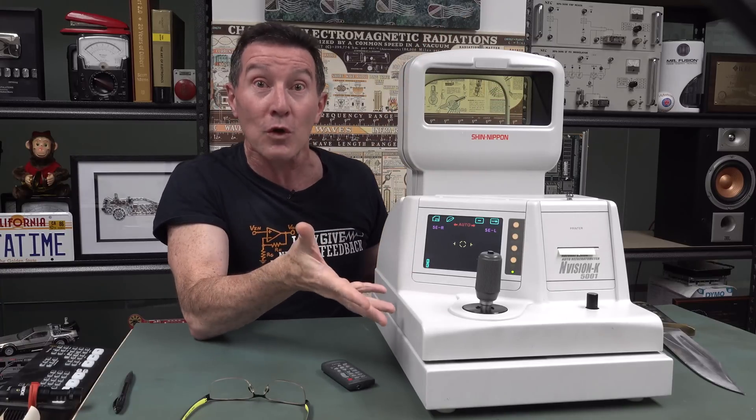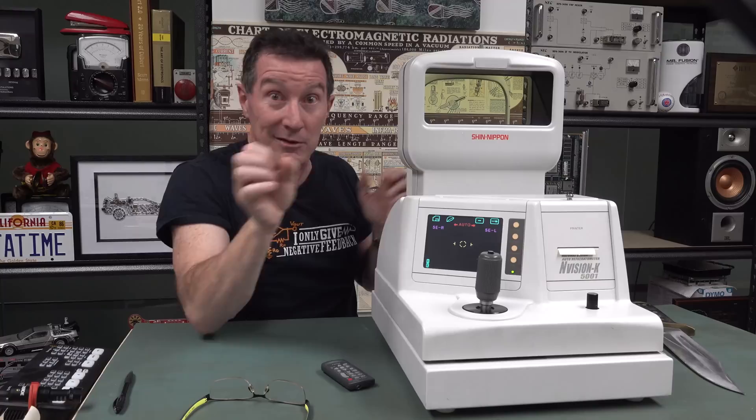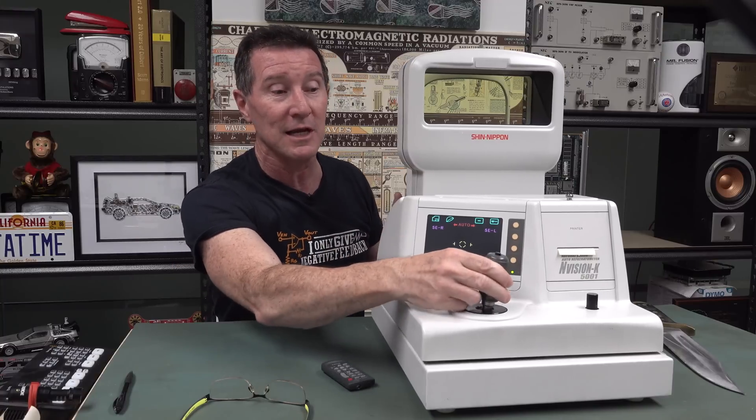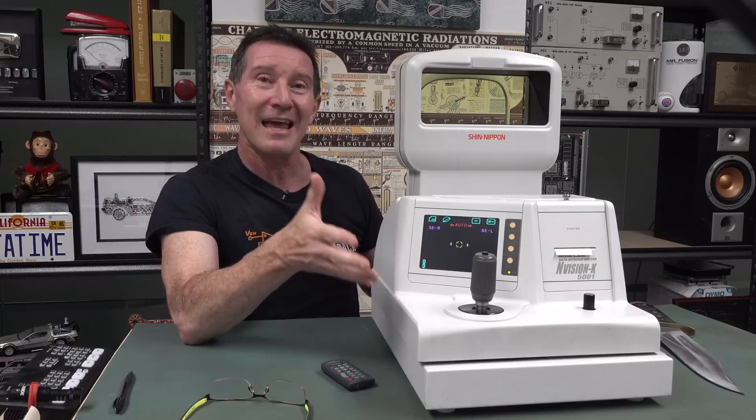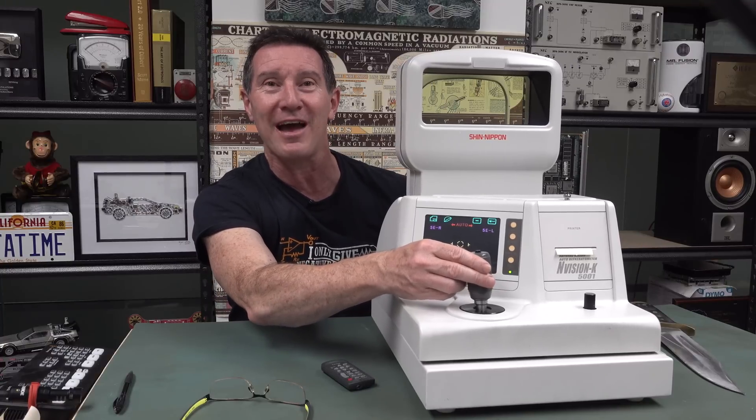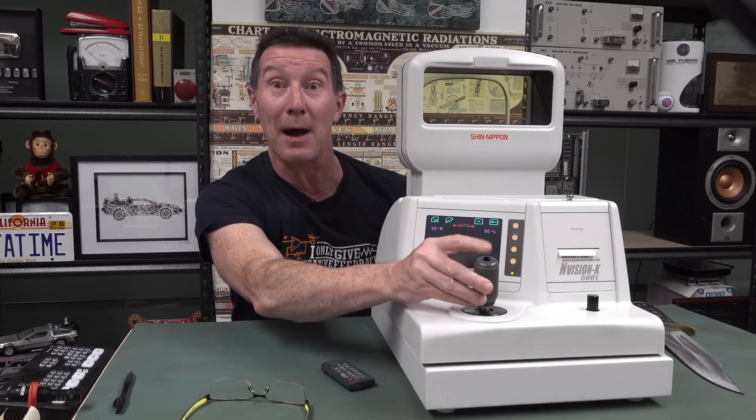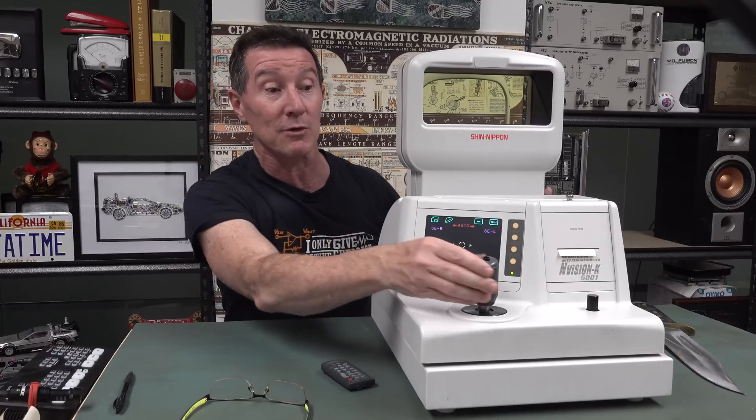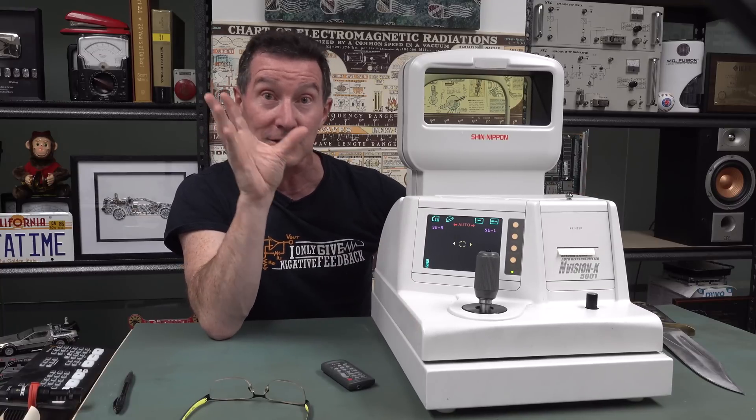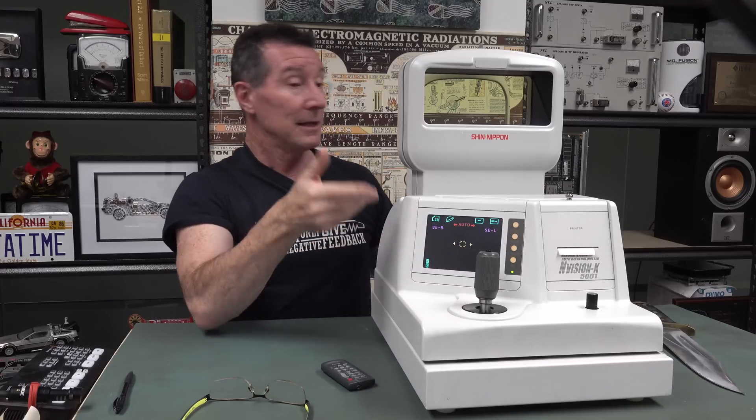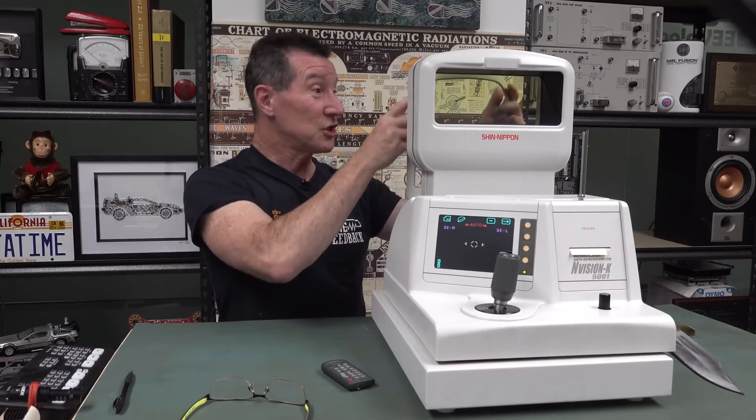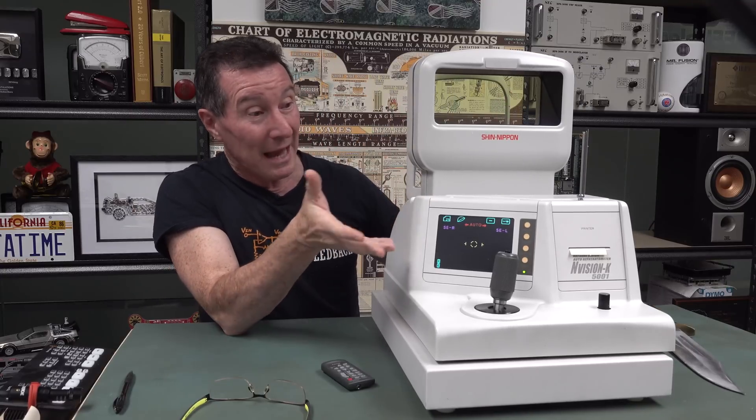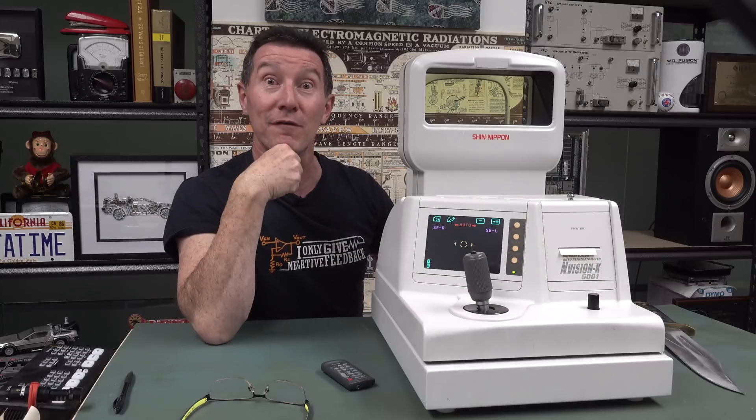And this is an auto model. So you just line it up. And that's what this joystick physically does. This joystick doesn't actually do anything electronic. It's actually, I can simply move this platform like this, forward, back, left and right. But the joystick just allows a little fine adjustment like that. And it's got a little fire button on the top. But it actually works without the fire button. It actually does all the measurements automatically. It'll determine when the eye is open, correct alignment and everything else. But basically, this is just for the optometrist to align your eye. And then you can shift it left and right eye, of course. And it's just got a chin bar attachment. On the back and Bob's your uncle. It spits out a measurement of your eyeball.